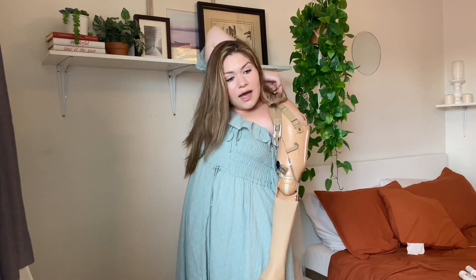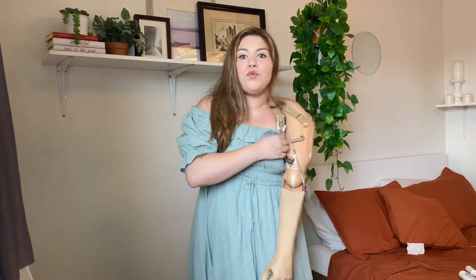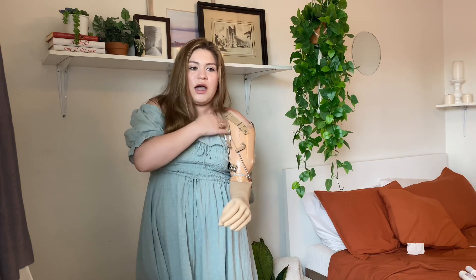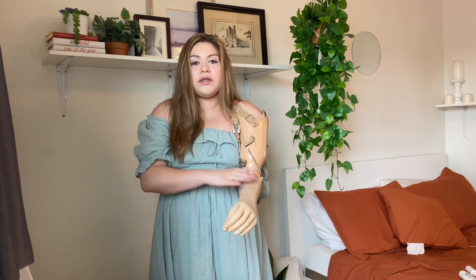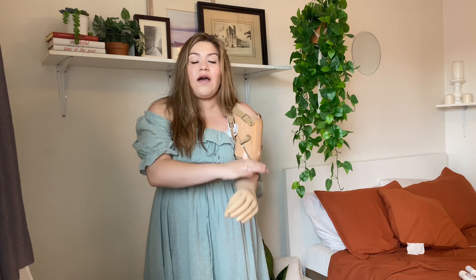It has to go in the middle so my arm can move properly. I wear this sometimes when I'm driving to far places, or I wear it under my clothes — I never really wear it over my clothes just because I don't like how it looks. Usually I can't carry really heavy things — that's the thing about this arm.